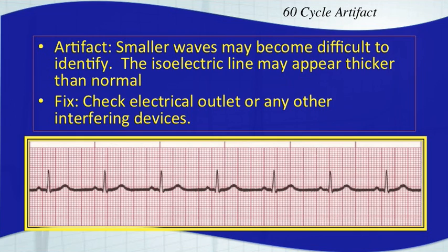Now let's talk about some different types of artifacts, because we've mentioned it in a few ECG cases and lectures prior to this. If you look at this rhythm strip here on the bottom, you'll notice that the baseline looks to be a little thicker — and if you look real close, it's because of artifact. We call that 60-cycle artifact, which is usually related to an outside source, like having your monitor plugged into the wall or other electrical interferences. Generally, if you have big QRS complexes and big P-waves and you're monitoring a pretty good lead, it won't interfere with your rhythm interpretation, but it's generally not a good thing to have. You should try to eliminate it and get a nice clean rhythm tracing.